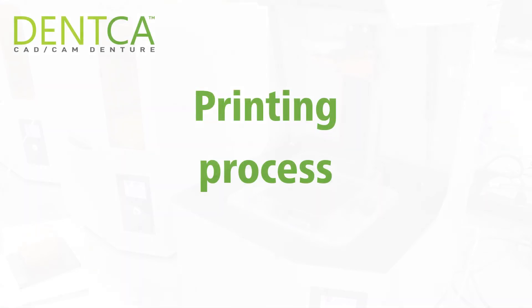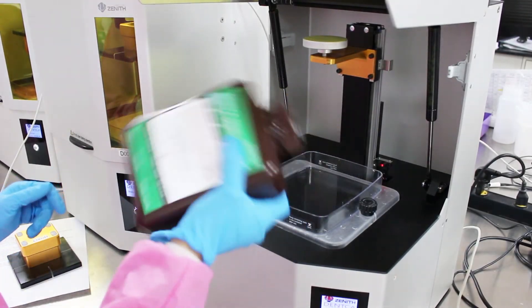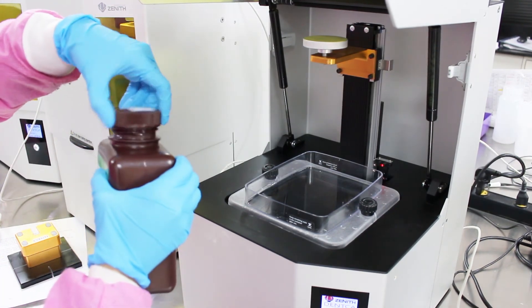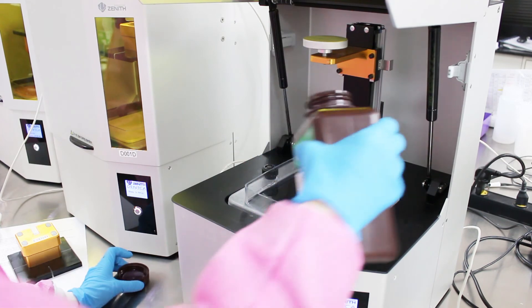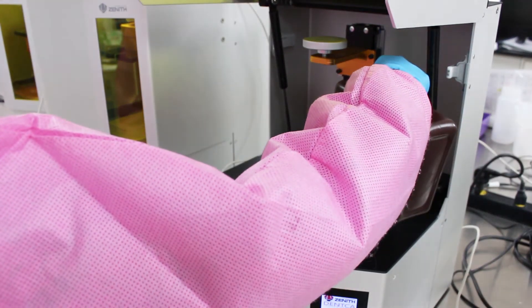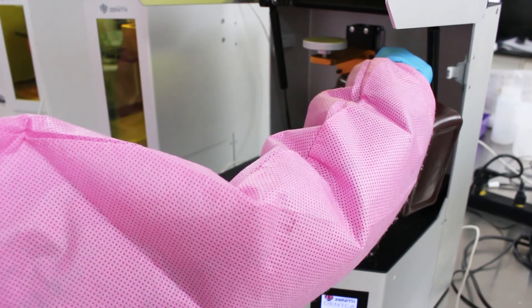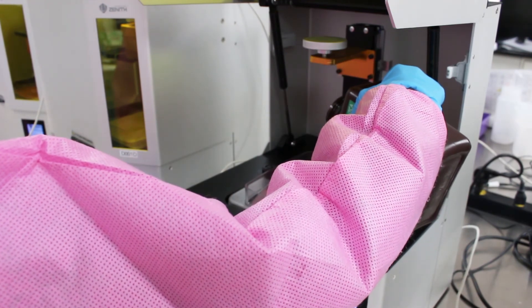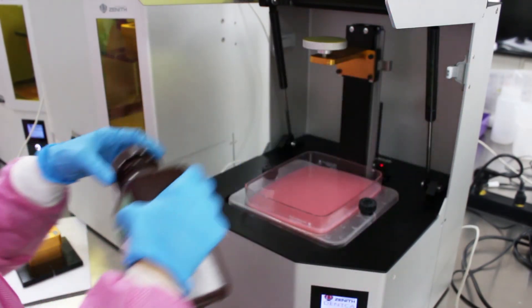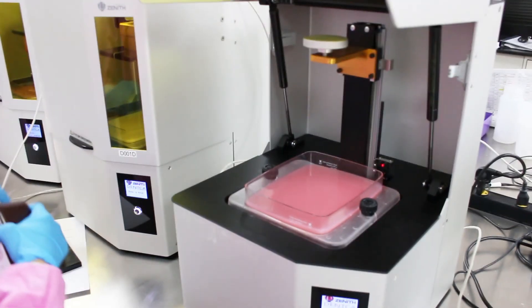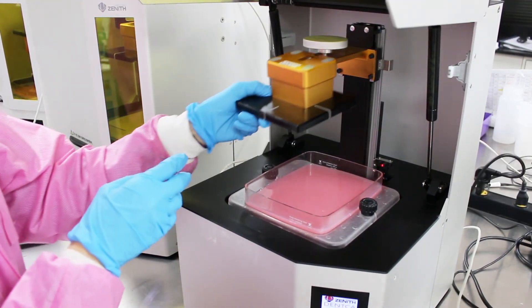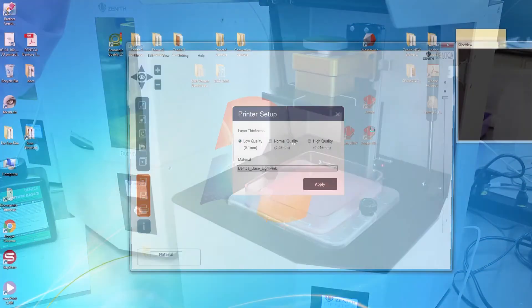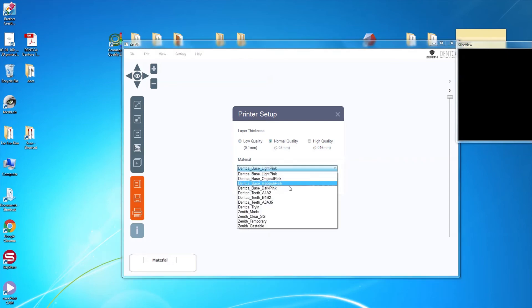Turn the printer on and screw in the resin tank in the printer if you haven't done so yet. Make sure you shake the bottle prior to pouring it in the tank. Fill out the tank with a desired tooth or gum shade to about one third of the tank's capacity. If you would like to find specific volume amounts of liquid for each print in order to minimize material waste, please refer to the standard operation procedure for more information. Once ready, connect the building plate and close the lid. Connect the USB cable corresponding to the printer you're using to the computer. If you have more than one printer, ensure you select the correct cable and open the software corresponding to that printer.